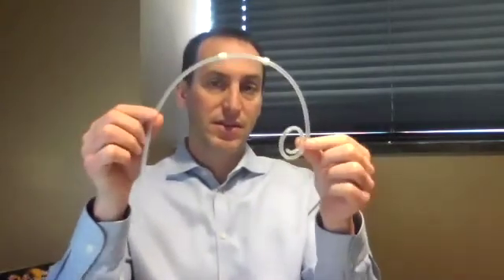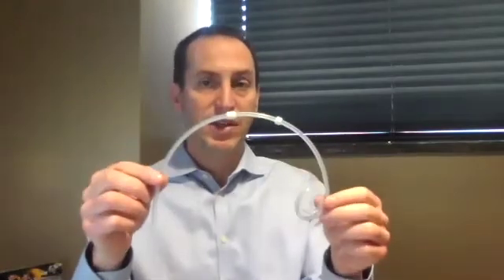The second type of catheter is the peritoneal dialysis catheter. This catheter is placed into the abdomen to perform peritoneal dialysis. If we were to take a picture of the patient's abdomen and cut it in half from the top down, we would see the skin, some fat or tissue underneath, some muscle under that, and underneath all of that, the peritoneum — which is why it's called peritoneal dialysis.